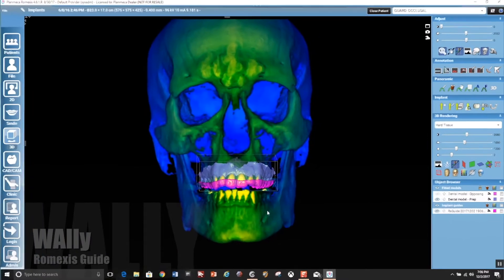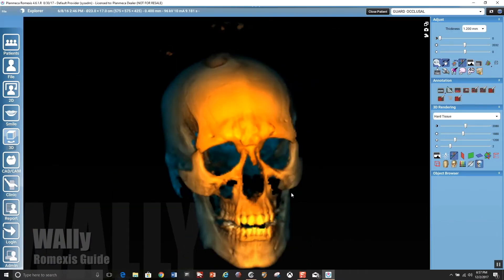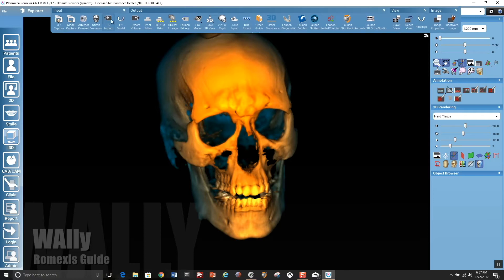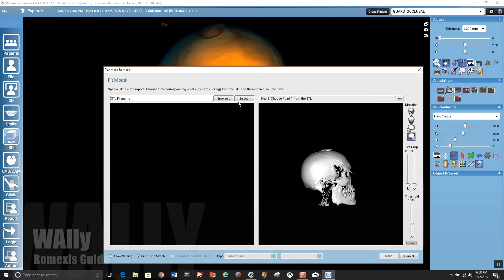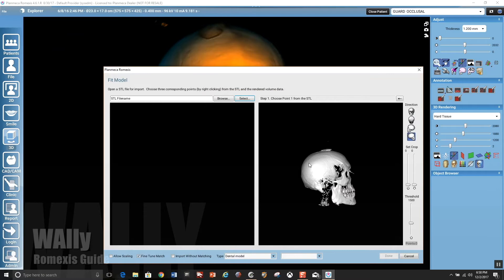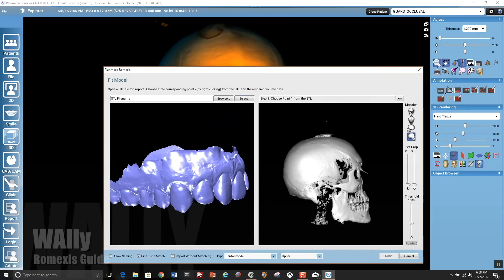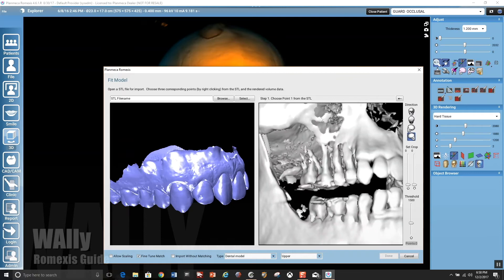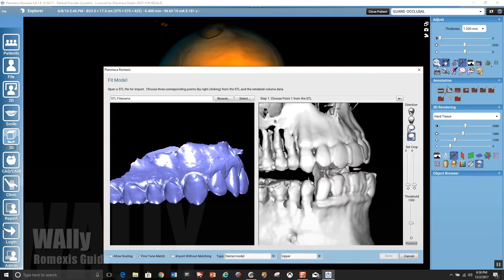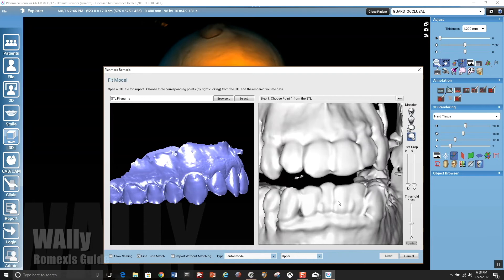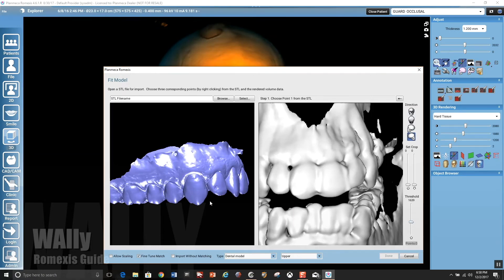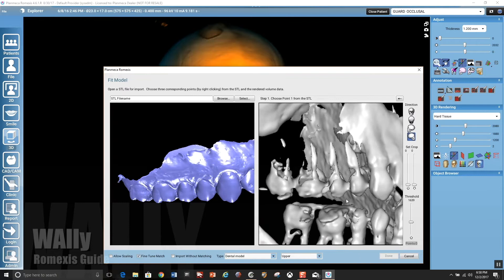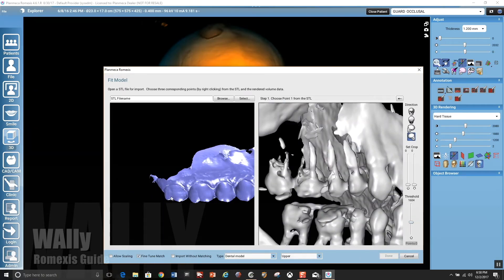So the first step is you have to have a CBCT or DICOM data loaded. It doesn't necessarily have to even be the patients who you're working on. It could be any patient, really. But in this instance, I do have a CBCT of the patient. But you need to merge it. So let's say you didn't have DICOM data for the patient you were doing the guard on. You would just kind of merge it inaccurately to any maxillary arch.